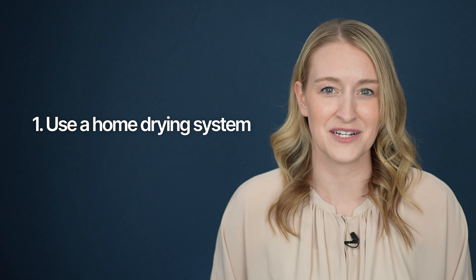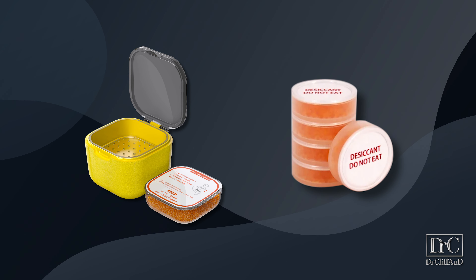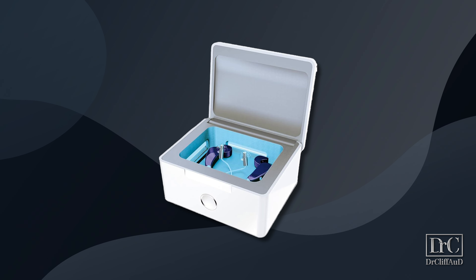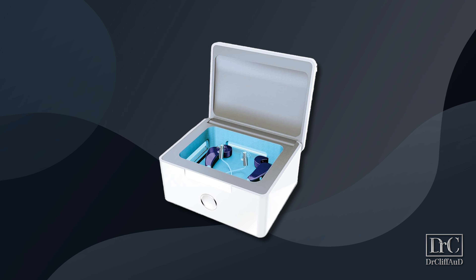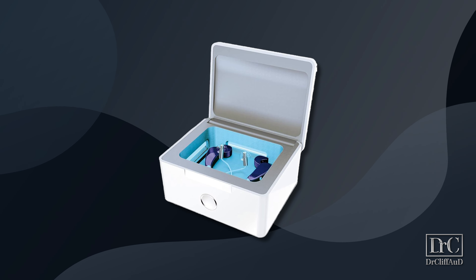The first way to keep moisture out of your hearing aids is by using an at-home drying system. Some hearing aid dryers are passive, simply using silica beads to remove moisture from your hearing aids when they're not in your ears. These come in jars for battery-operated aids and in small desiccant packs that you can slip into your charger for rechargeable hearing aids. Active hearing aid dryers are often electronic and use silica beads in combination with a warmer temperature and circulating air to remove as much moisture from your hearing aids as possible, drawing moisture from humidity and sweat.